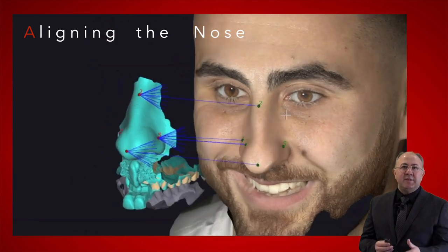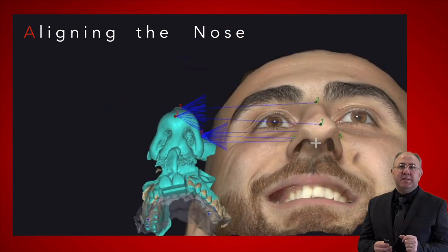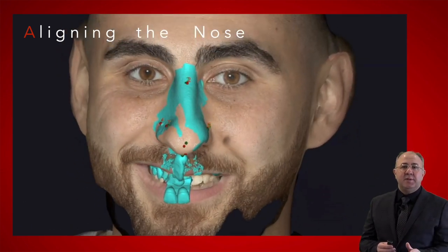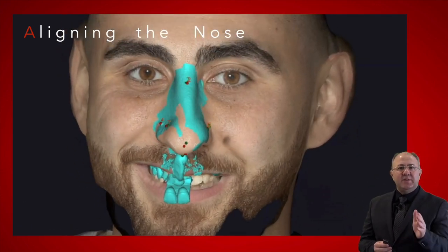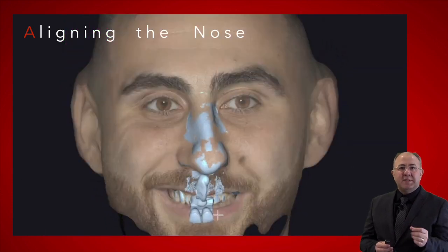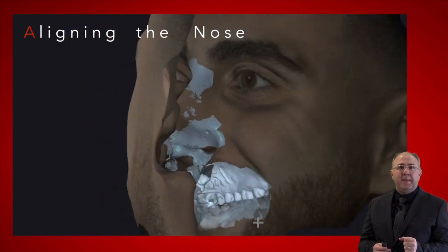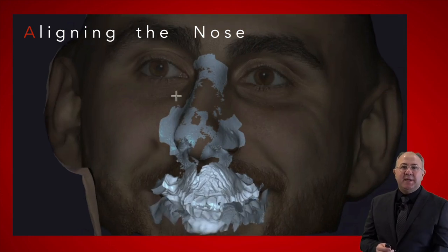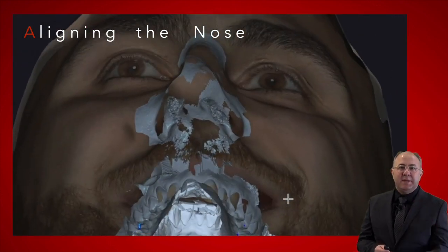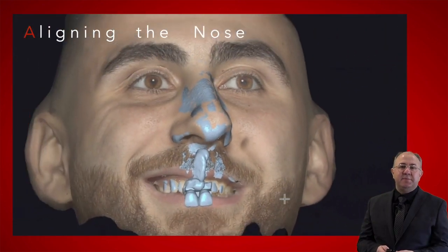It's a much easier process and more predictable. It's no longer important that the facial scanner cannot capture the teeth precisely. Now I can communicate better with my patient, present a better treatment plan, and provide a better outcome.